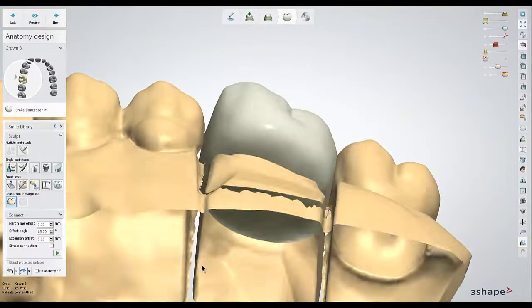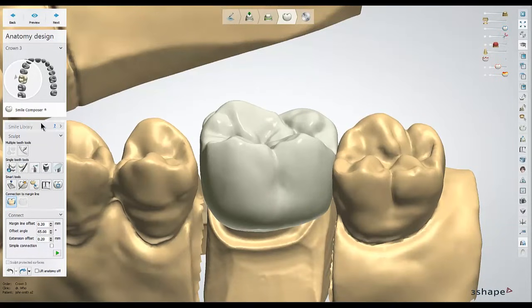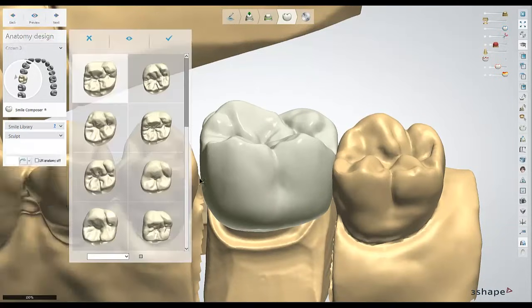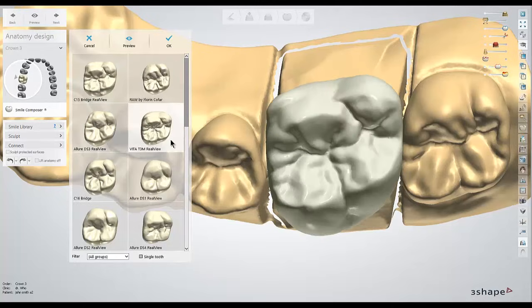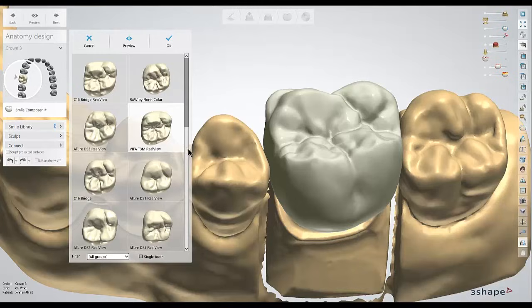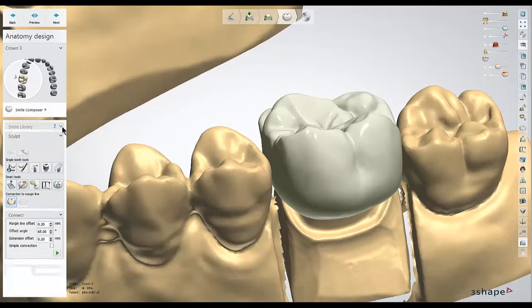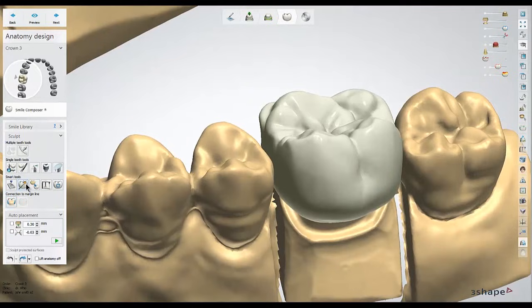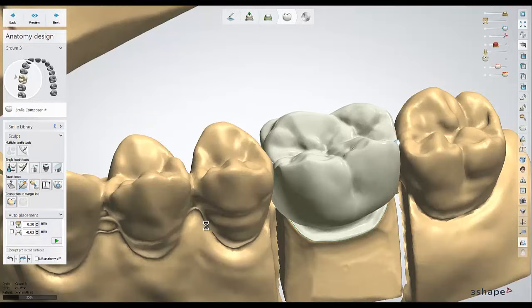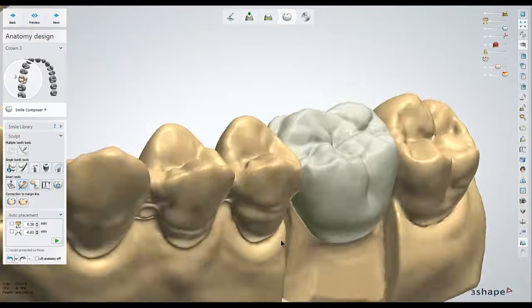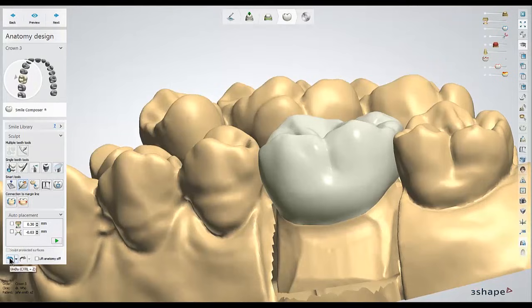Now that the crown is no longer attached to the margin, I'll go to the smile library area so I can pick a different anatomy library. You can left click on any of these options to pick and choose and preview different libraries, and just choose one that you think best matches the adjacent teeth or what the doctor is asking for. After making your choice of library, you can hit the OK button. The next tool I would try is the auto placement tool, which should automatically reposition the crown for us. Sometimes it won't always do the best job, but if it does work it'll save you a good amount of clicks, so I always give it a shot.